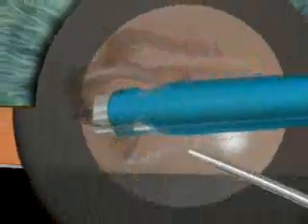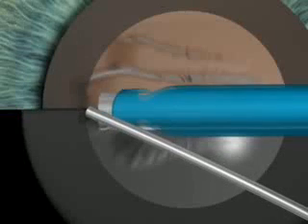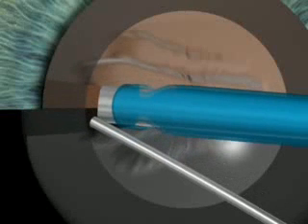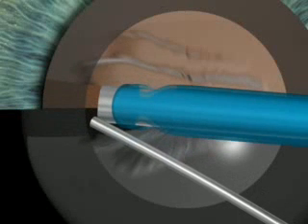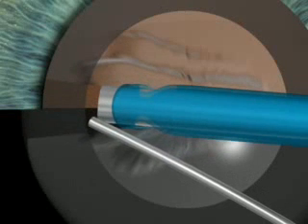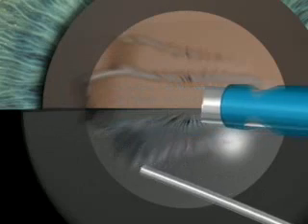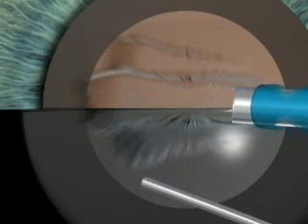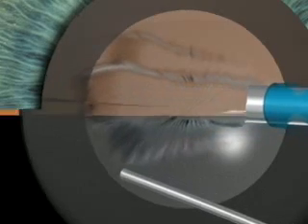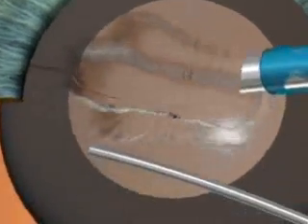The instrument tips move deep into the trench and the lens is cracked. The cracked lens is then rotated and cracked again until four quadrants are left.